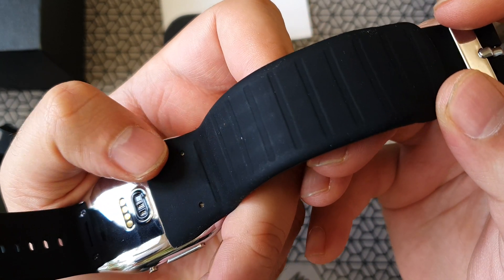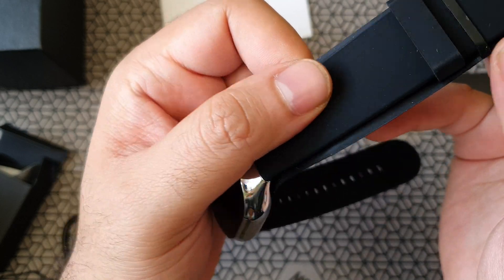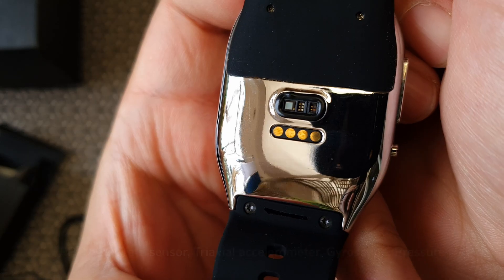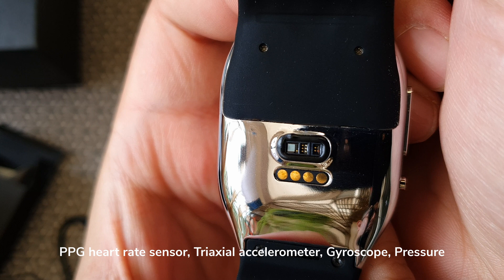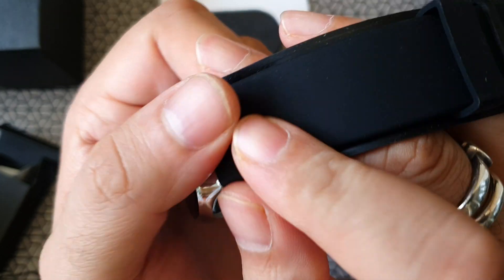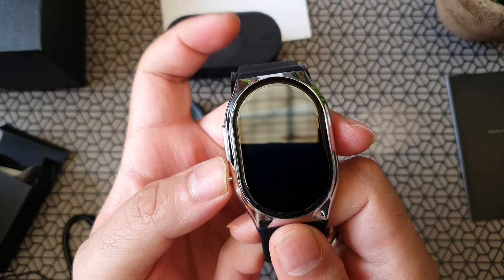This looks like the inflatable section. To be honest, I really did not know this watch inflates. This material here is stainless steel medical grade, and all the sensors are located right at the back. For some reason the watch looked like the straps were actually fixed in the wrong orientation, but this is how this watch is made.